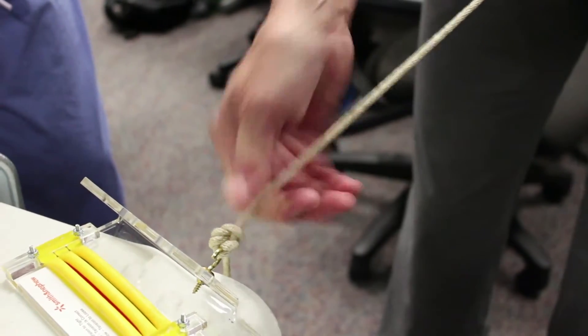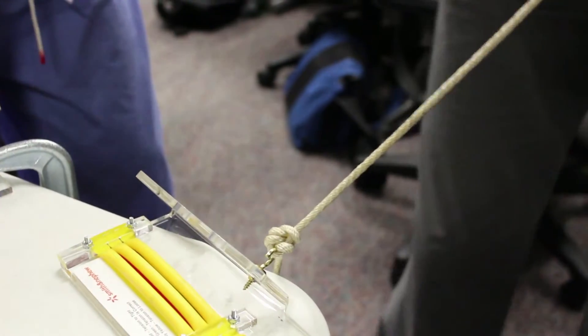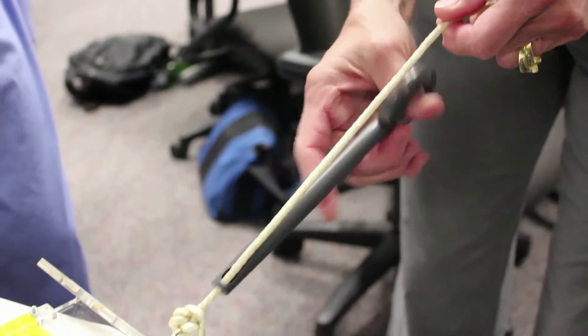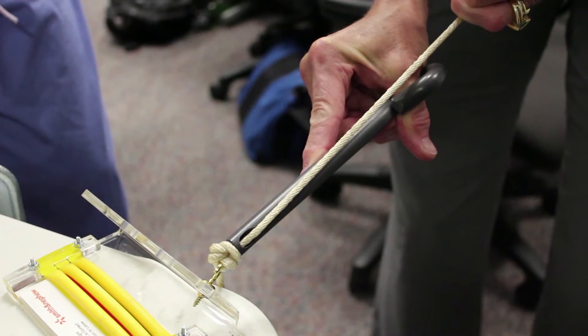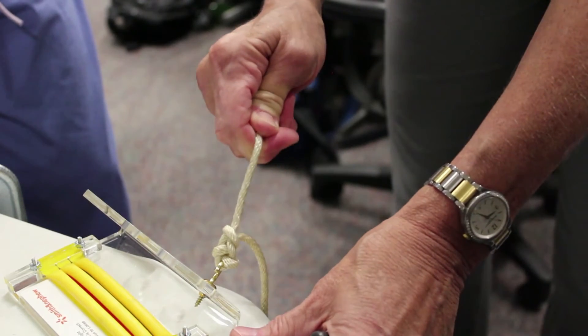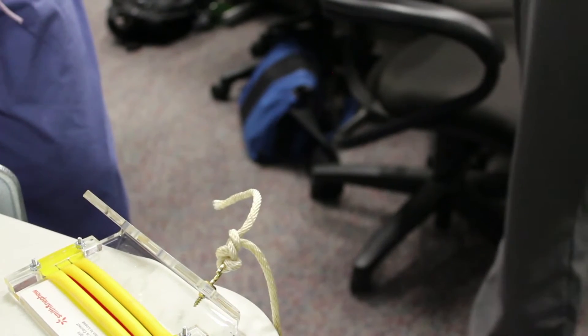At surgery, I usually use my knot pusher, but this is probably down about as far as you need for it to be down. But if you start messing with your loop limb, then you can't get it all the way down. And so then the pass point — as I'm sure he's already talked about — but see, I'm not getting it down too much further than where we started out. And then to lock it, you just pull this and then it'll lock, so you don't have to worry about keeping tension on it. Whereas with a non-sliding knot, you do have to keep tension on both of them.